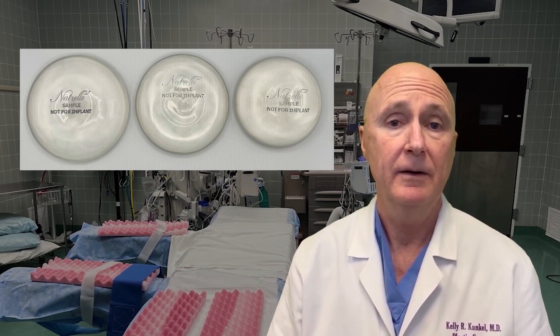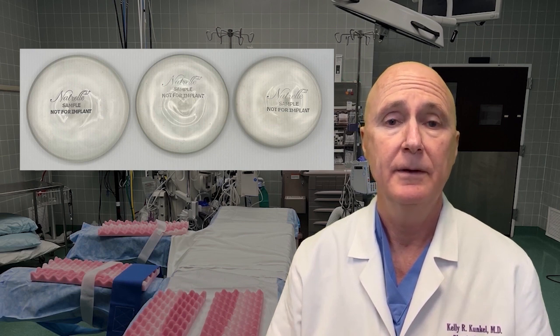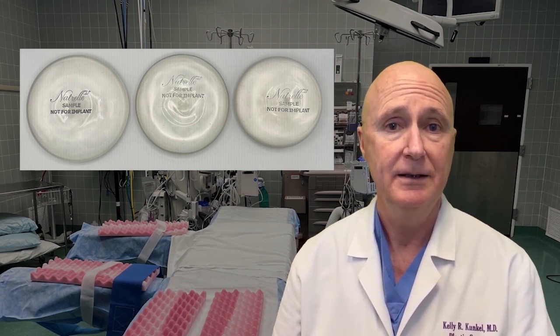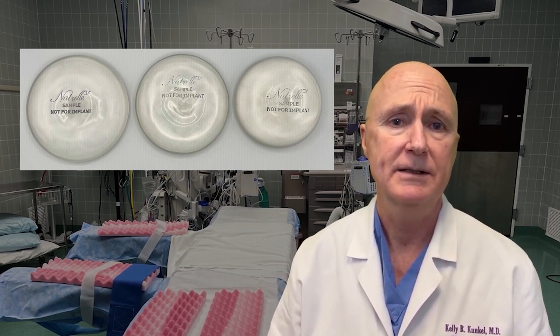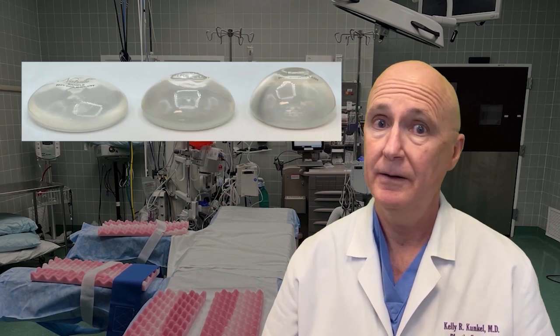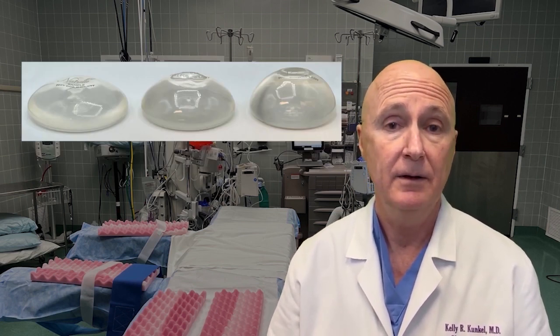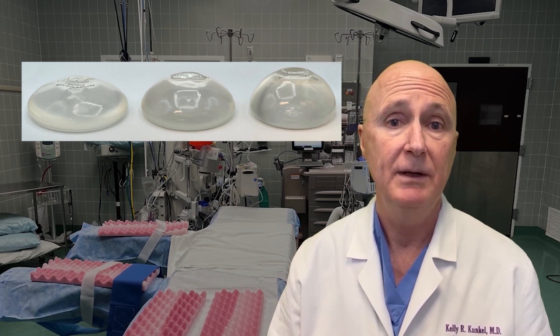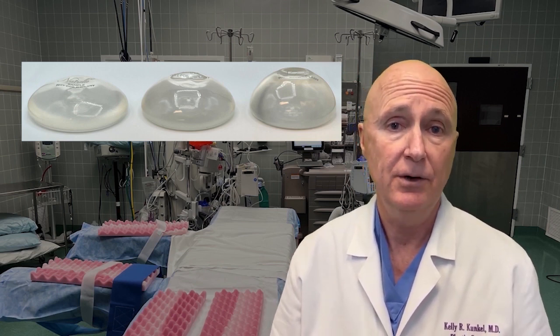The implant on the left is a moderate profile breast implant. It's a little wider than the other two. The implant on the right is a high profile breast implant, and the one in between is typically called a moderate plus profile breast implant. They're all the same volume, they're all 400 cc's, but the look a woman would get would be very different depending on which of those implants she chose.